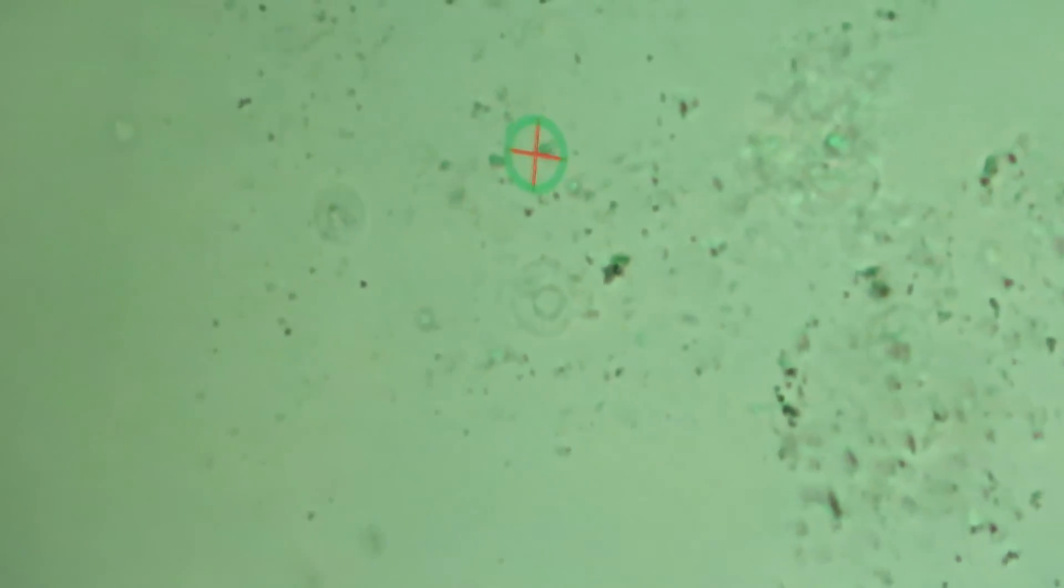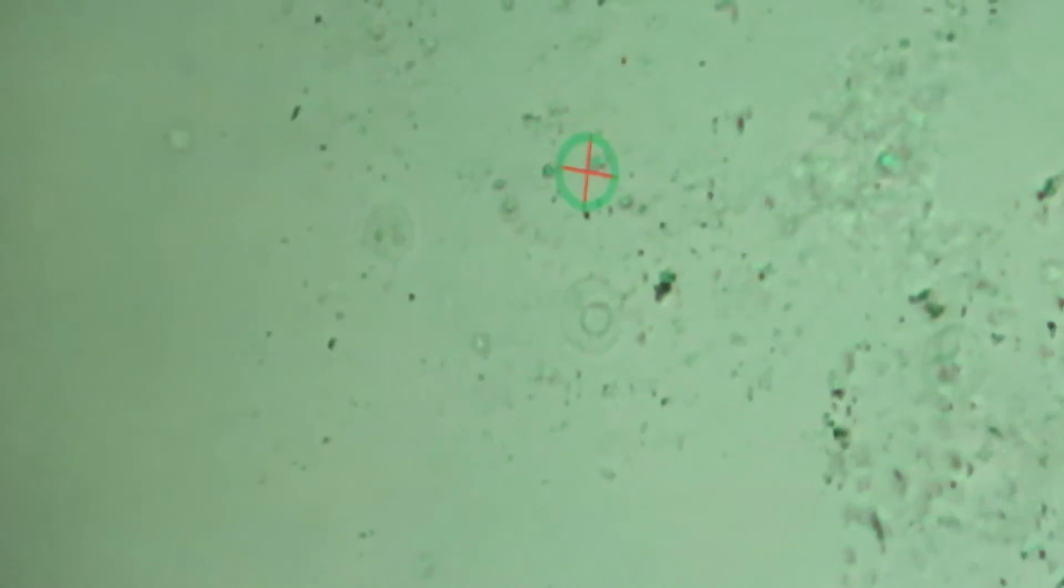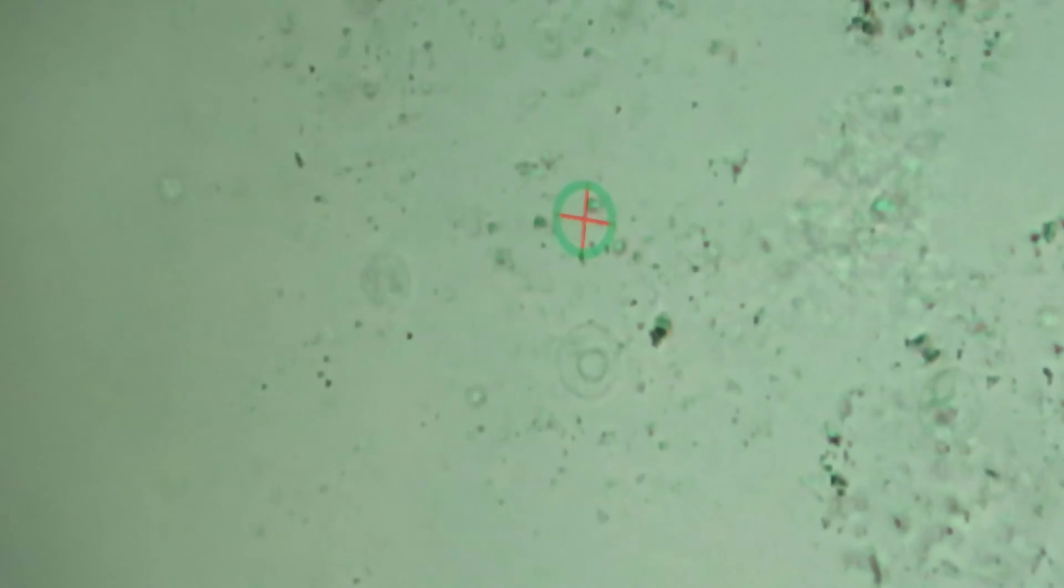Can we see the nucleus again if you please? One, two, three, four, maybe five. Can you see? So now, it's to gradually wash out the cytoplasm.